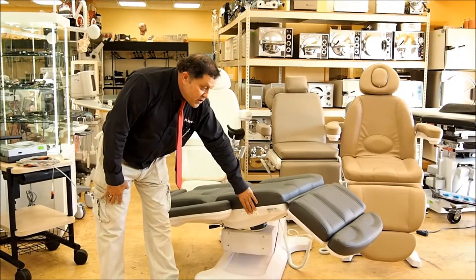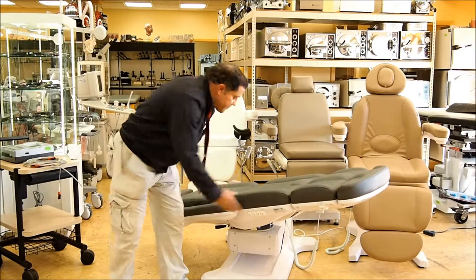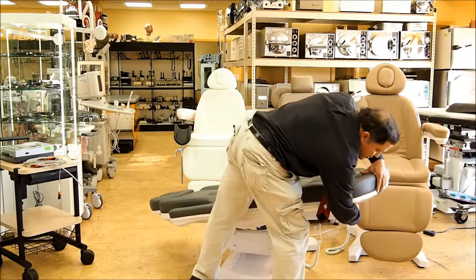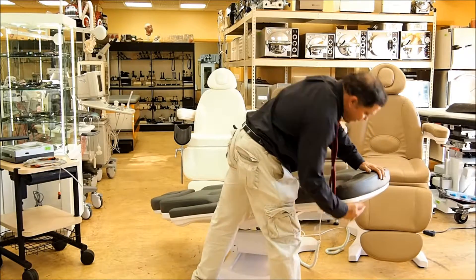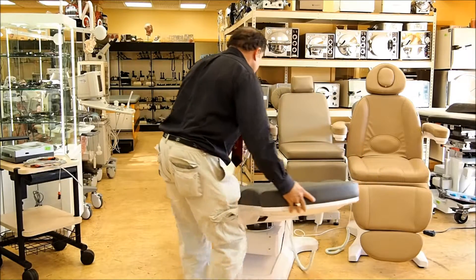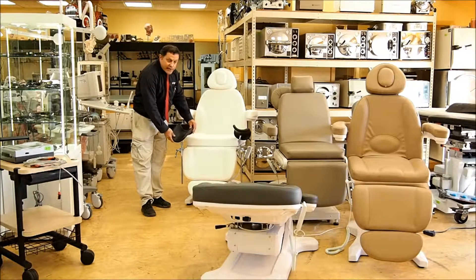These are also programmable. Now they come in different colors. They come with and without swivel. As you can see here, they also have a foot extension — so if you have a real tall person, you can slide this out an extra foot, foot and a half. It has automatic return. And they also come with stirrups right here.